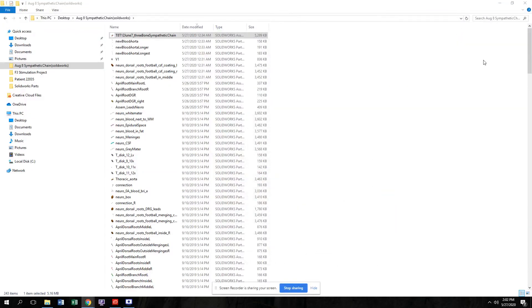In this video, I will be talking about RADOSCS, which is a realistic, anatomically detailed spinal cord stimulation model. This is an open source model that can be found on the CCNY Neural Engineering website. It was created in the CAD software SolidWorks, the 2016 version.